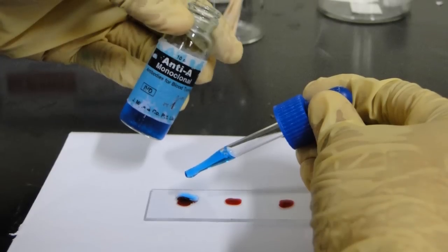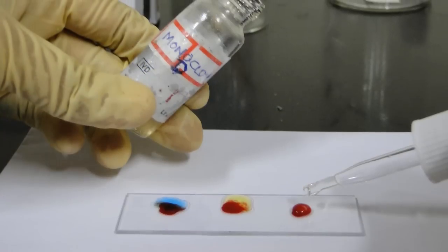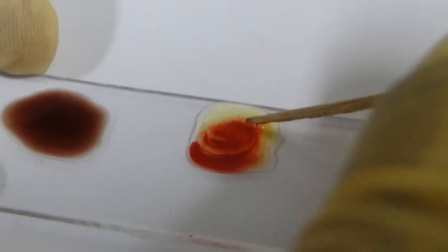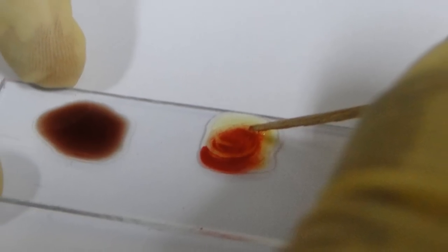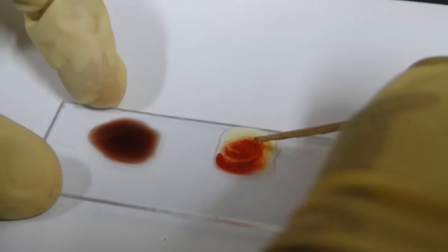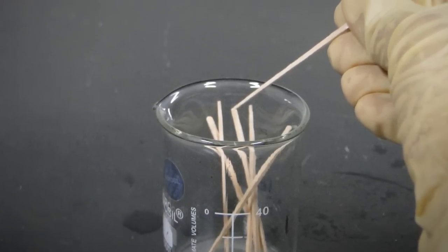Pour one drop each of anti-A, anti-B, and monoclonal D on each drop of blood respectively. Mix the monoclonal antibodies with the blood sample properly using a toothpick. Make sure you take a new toothpick for mixing each drop.